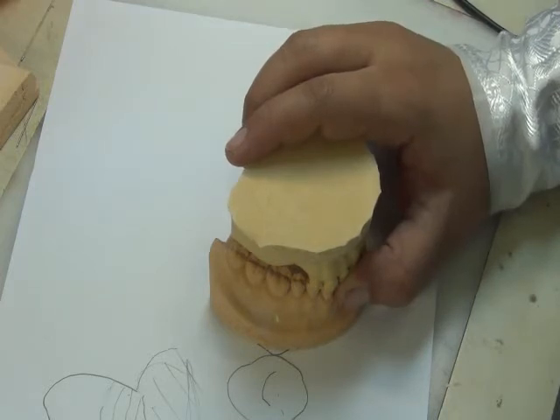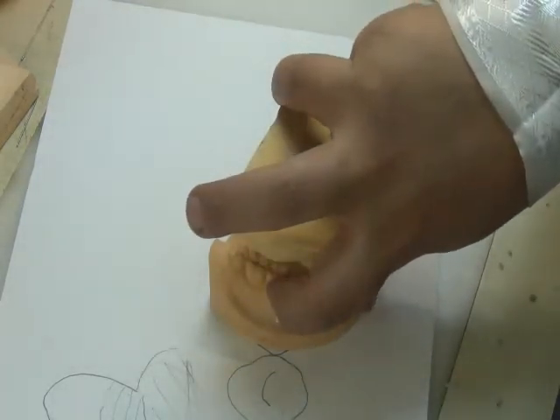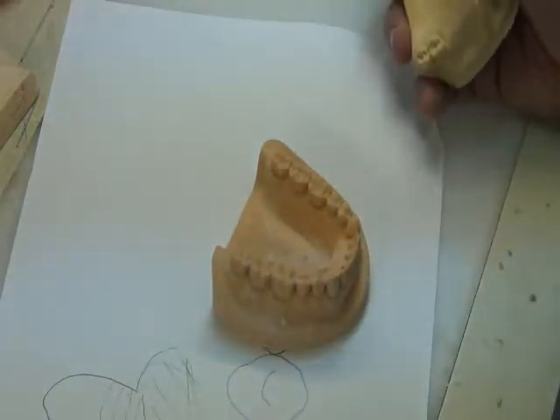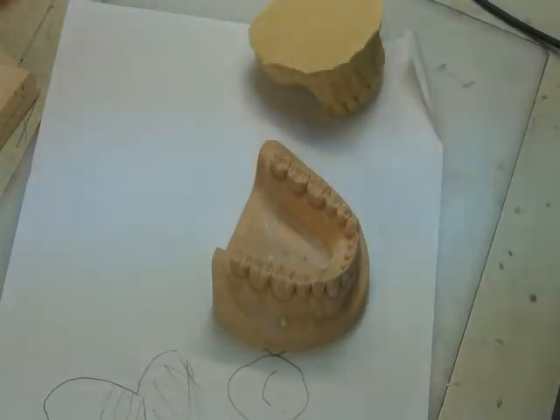But the jaw registration is simply we let the patient bite on what he has, because here we have a free-end saddle, and here we have teeth, okay? And this occlusal table is regular and uniform. So simply the jaw registration step, do you remember we told you that in our complete denture we have 12 steps that we should record, so? We have the midline, canine line, smile line, visibility, buccal corridor, canine fullness, labial fullness, the parallelism, both anterior and horizontal parallelism. So many points of registration, okay?